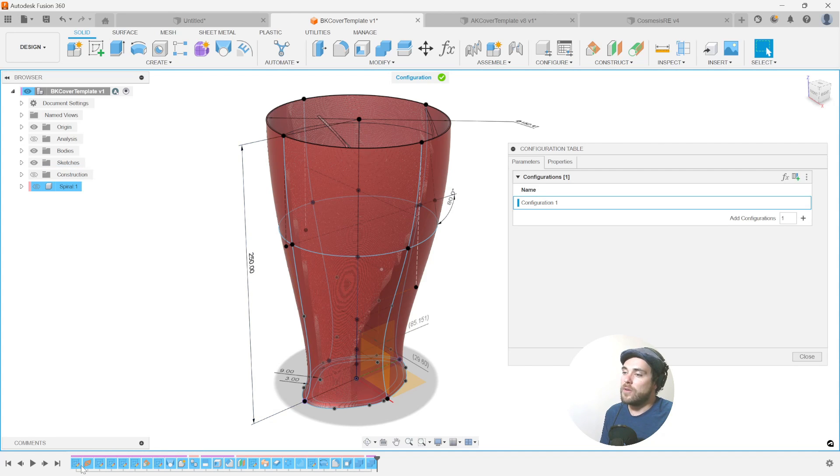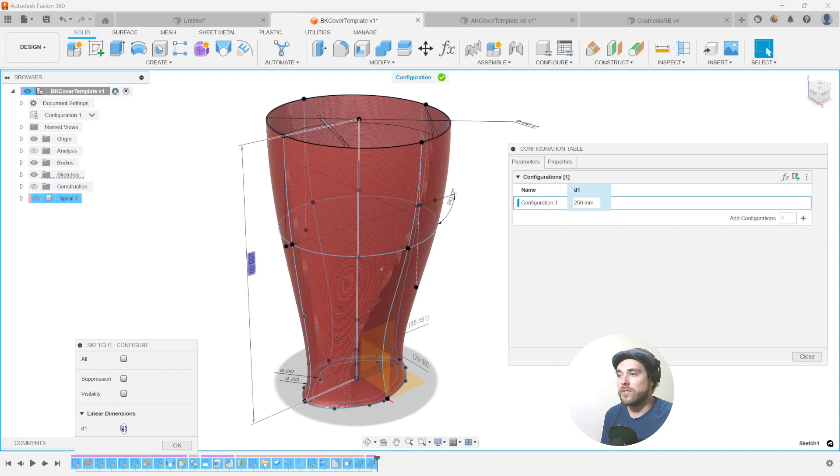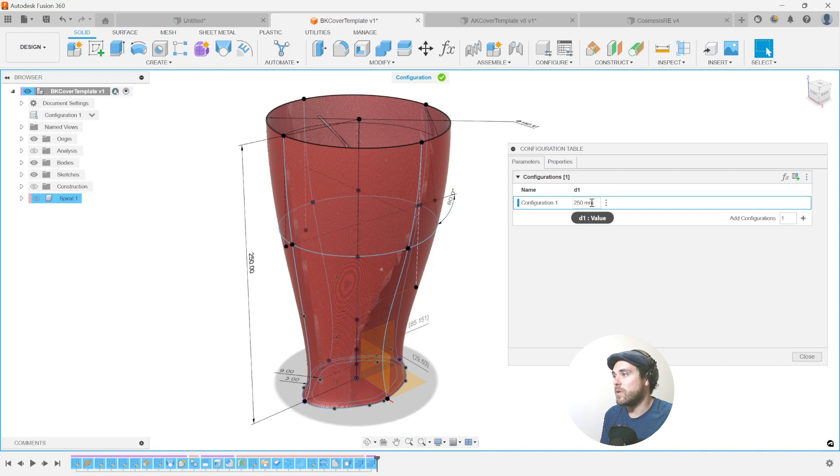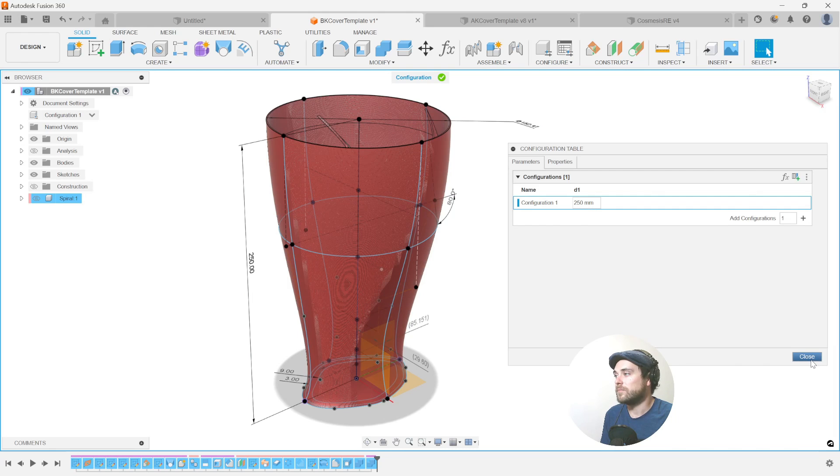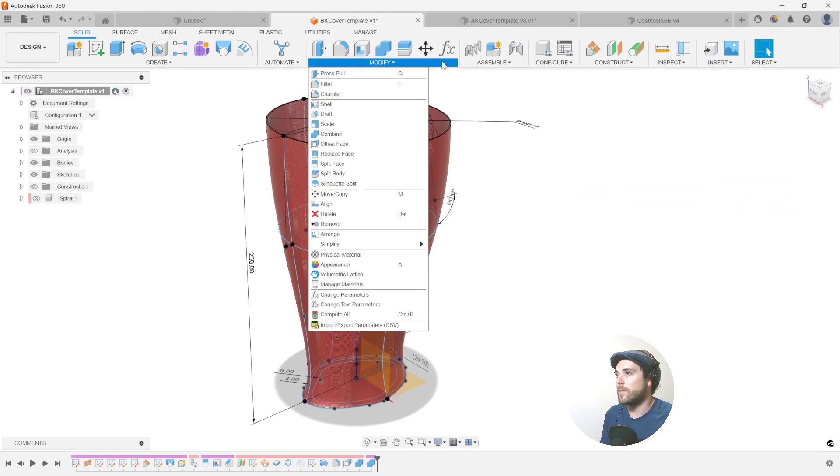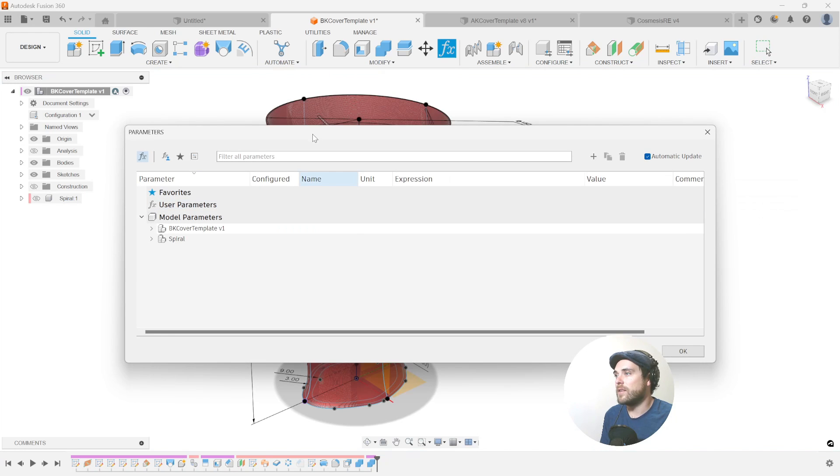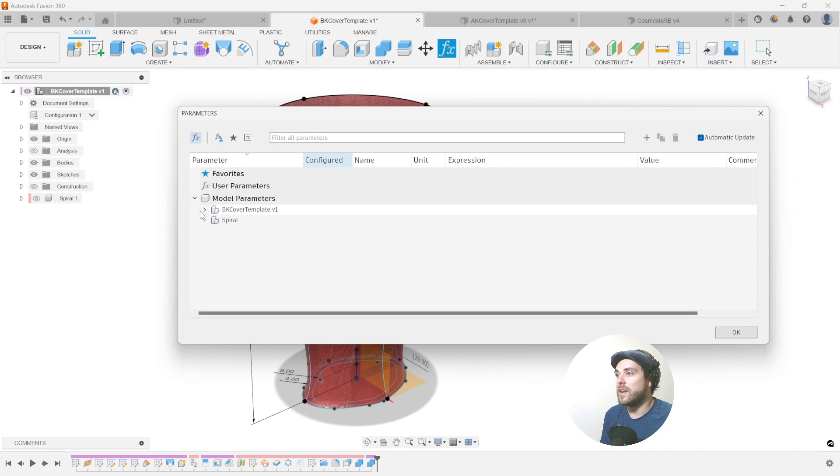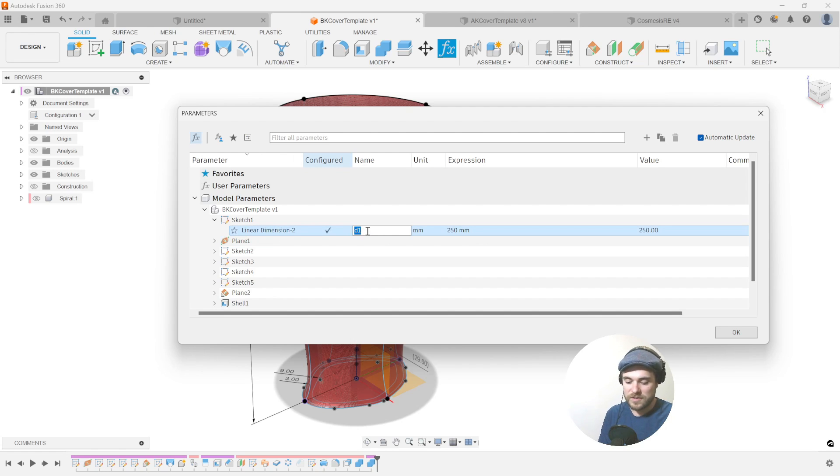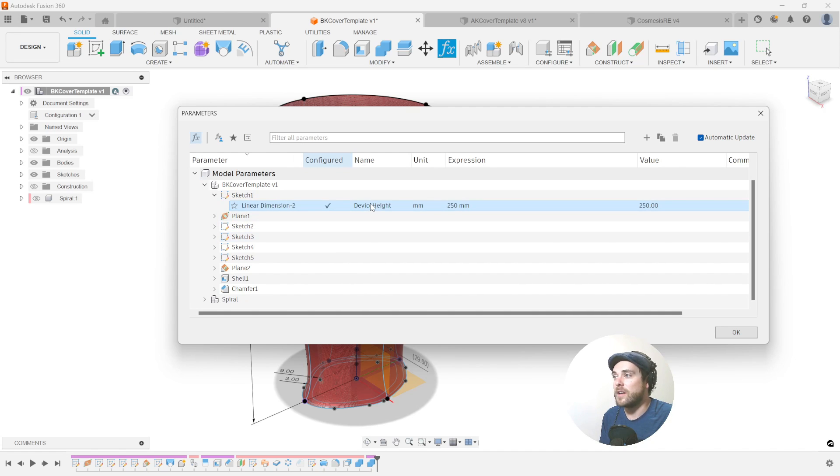Starting off, I know that D1 is going to be one of the most important dimensions. D1 was the height and that is something that I will want to configure. So if I check D1 from this Sketch dimension, what's available to be configured is in blue. We now have D1 as a variable that we can affect inside this table. So to make this a little easier, you can also go into the parameters button, the parameters tables here, and you can actually go into this before starting and actually name all of these special dimensions. So linear dimension 2 is named D1. Well, I can change this to device height. And now that will be a much easier thing to find and to label as configured.